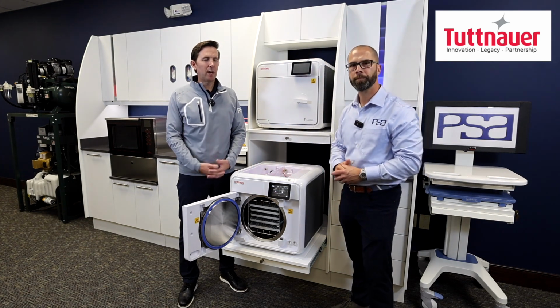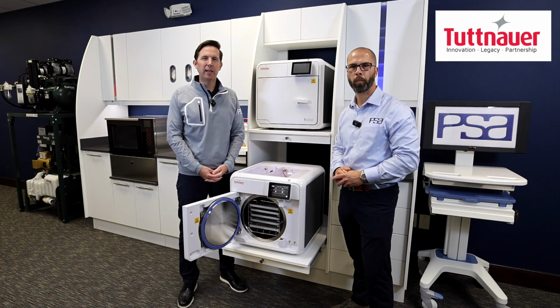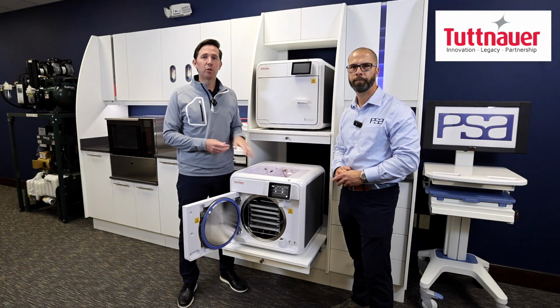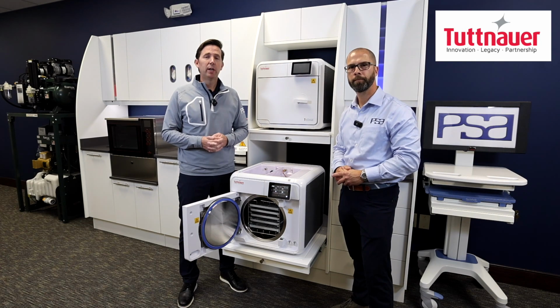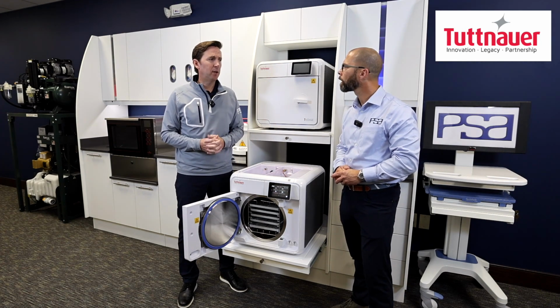Historically, that's what a lot of these Class S autoclaves have done, and it just kind of seems gross at the end of the day. And it also speaks to how clean our chambers can stay when we're using this water just one time. However, we still do have a requirement or a best practice of doing chamber maintenance. You mind sharing with us a little on the chamber maintenance cycle? Absolutely.